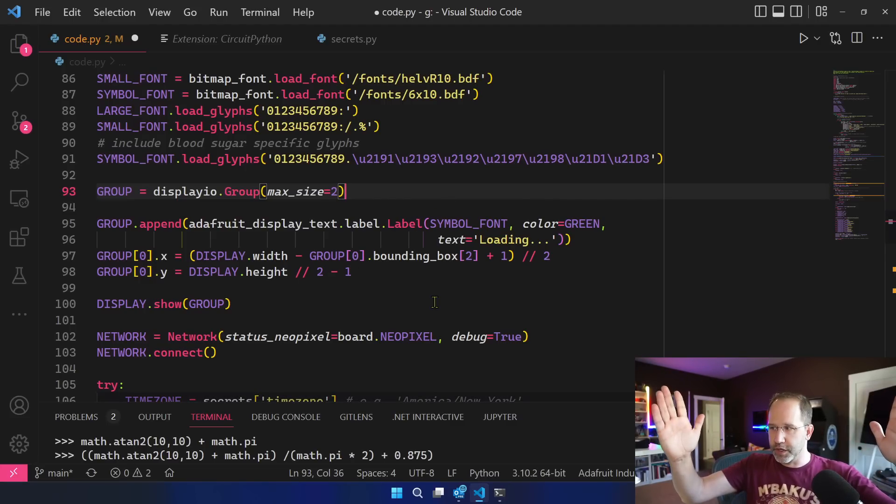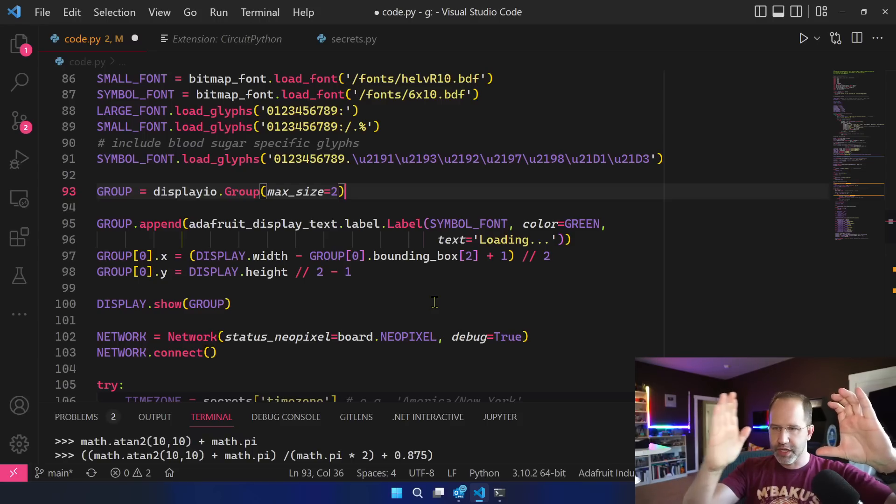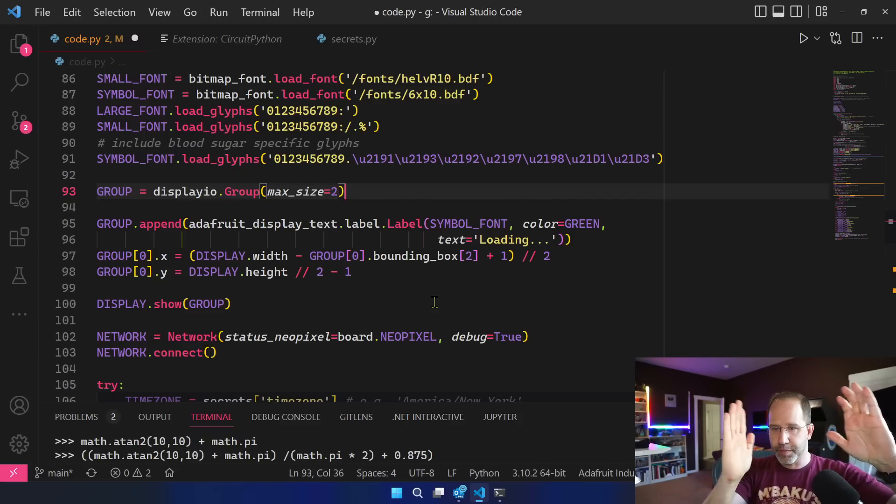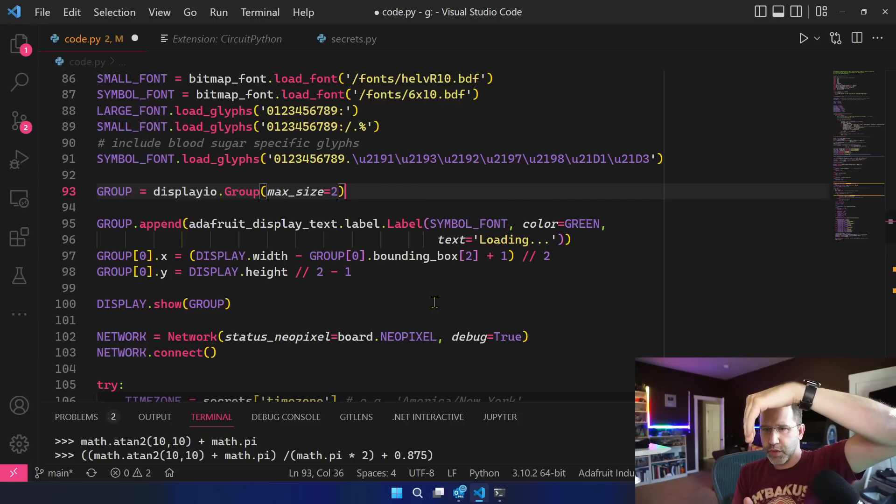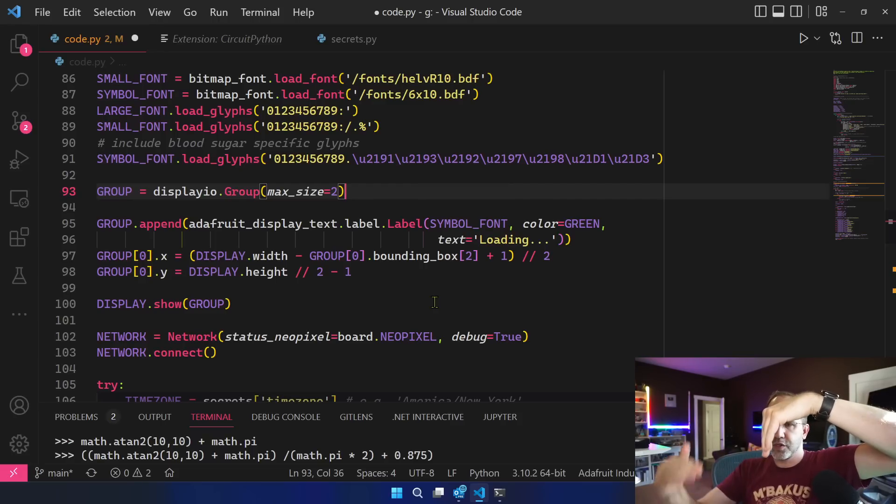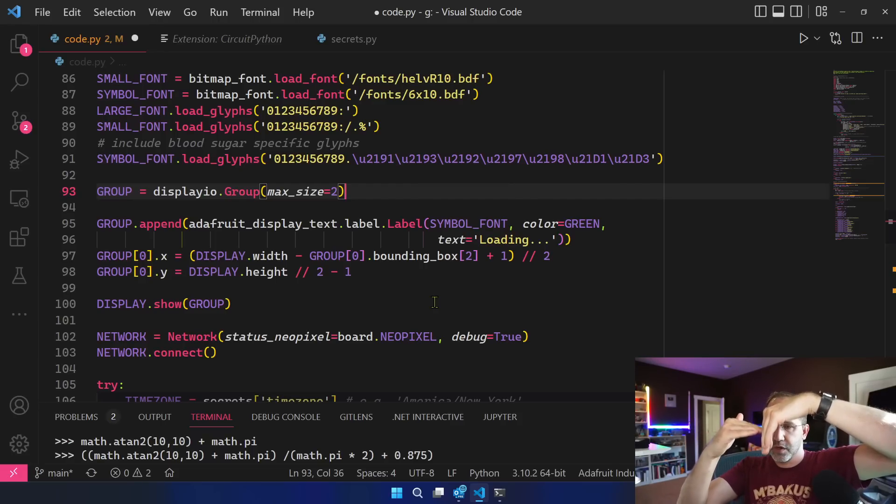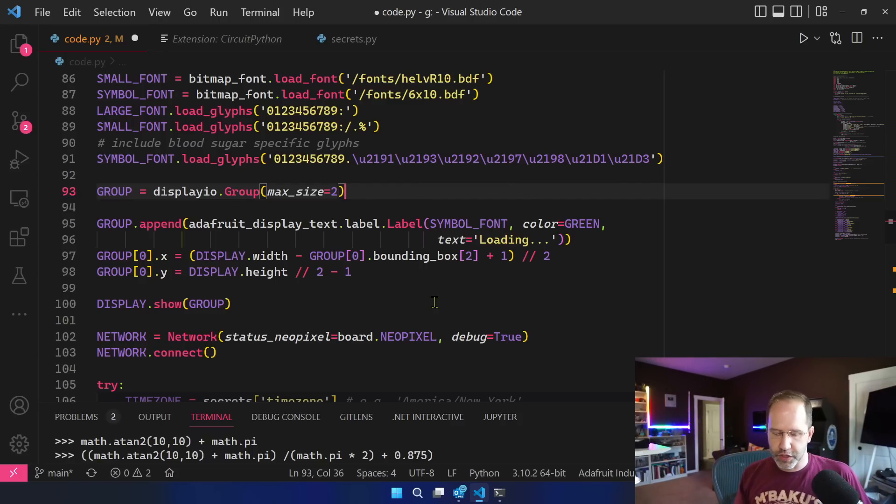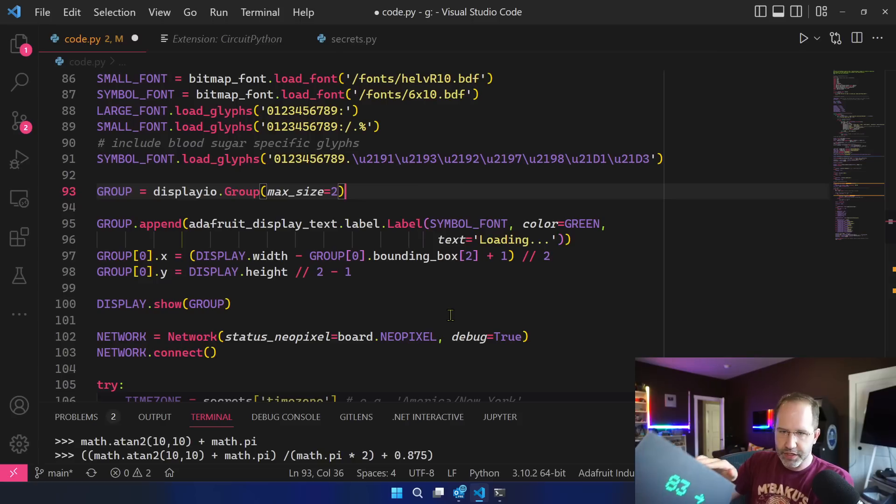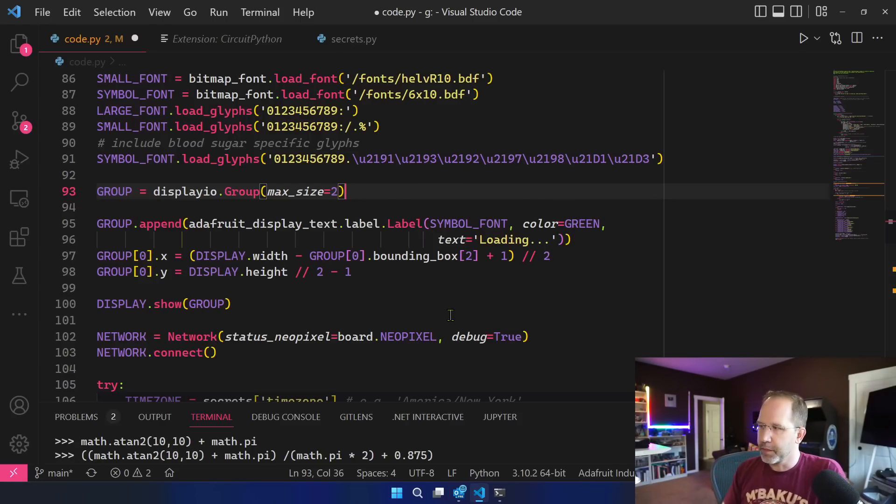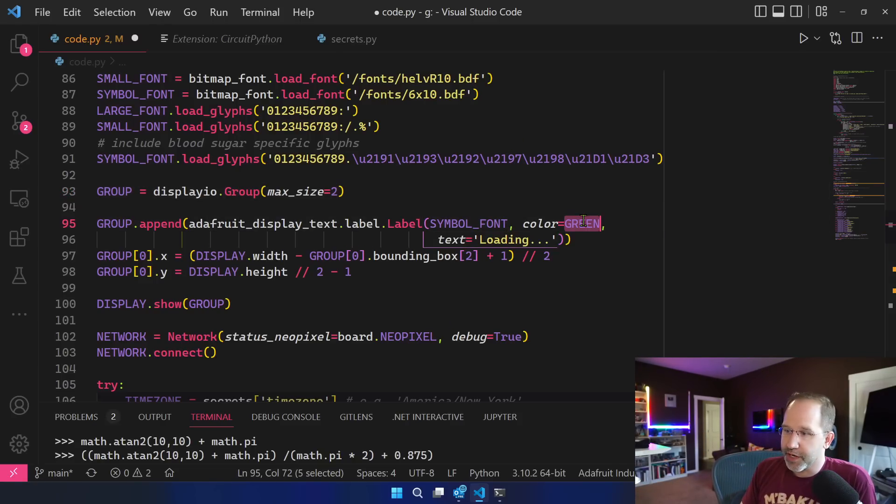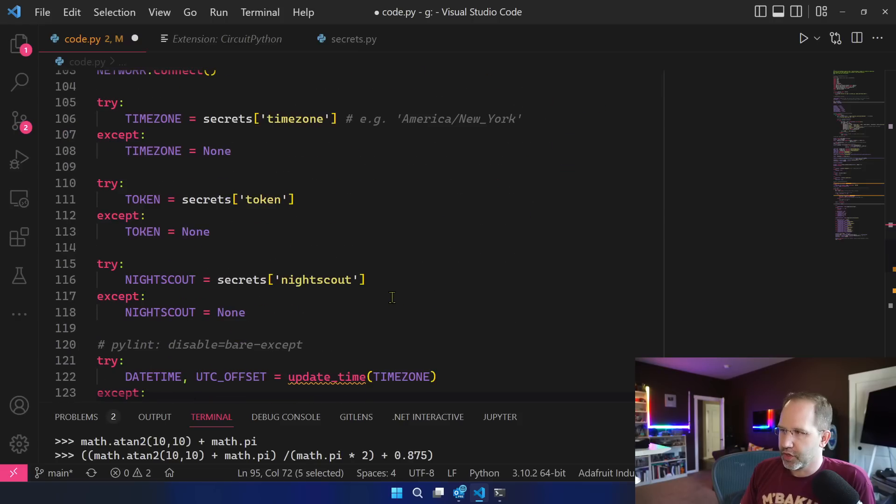And then you take a look at the width of the display, you subtract the box that surrounds your text, divide by two and that gives you the centered location and you get your x. You take the height divide by two and that's the center vertically and then you can go and display your group of text and that's why our text appears both centered horizontally and vertically. But it already got set to green. Okay, so let's go down.